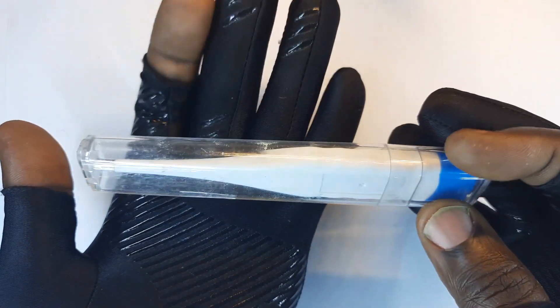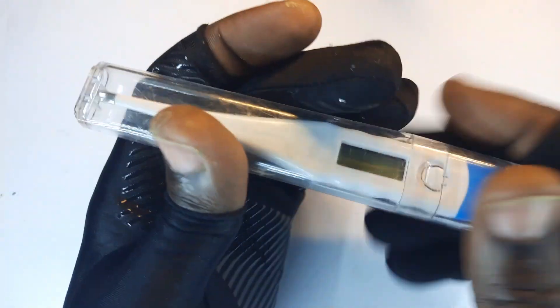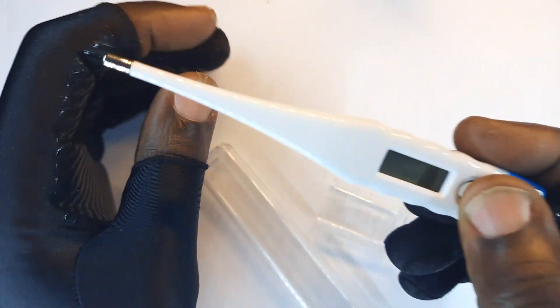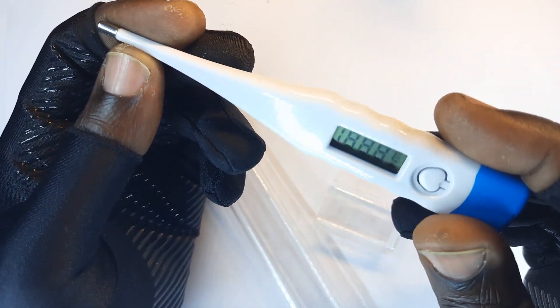This is a digital human thermometer. In case you need to measure your body temperature, this is the go-to item.